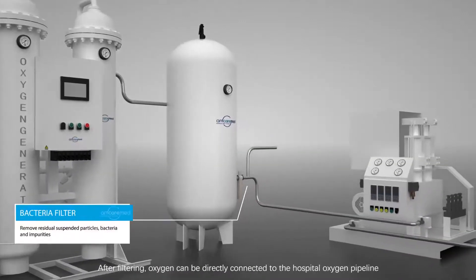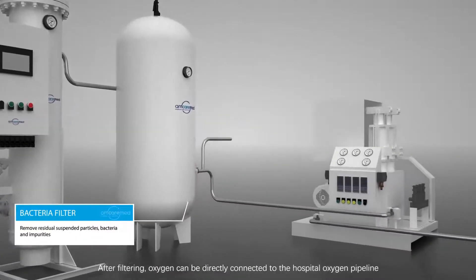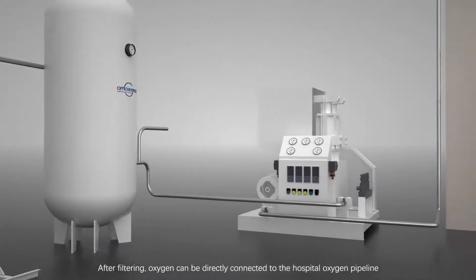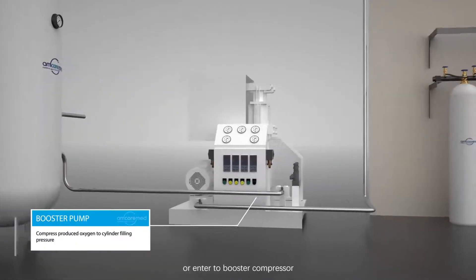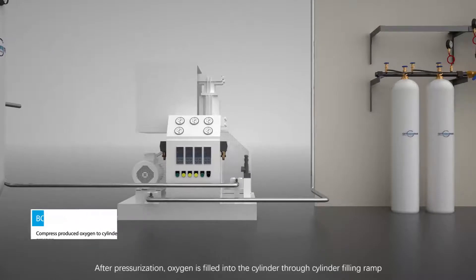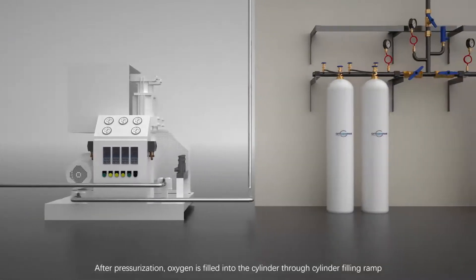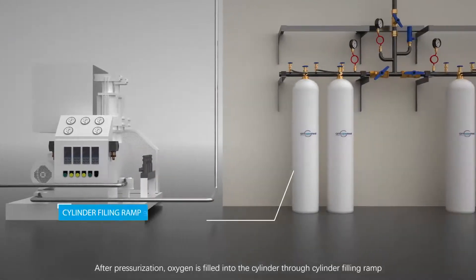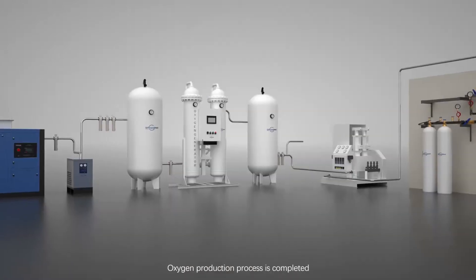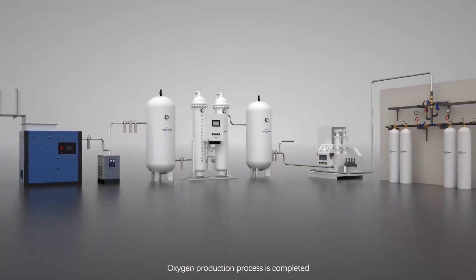After filtering, oxygen can be directly connected to the hospital oxygen pipeline or enter the booster compressor. After pressurization, oxygen is filled into the cylinder through the cylinder filling ramp. The oxygen production process is completed.